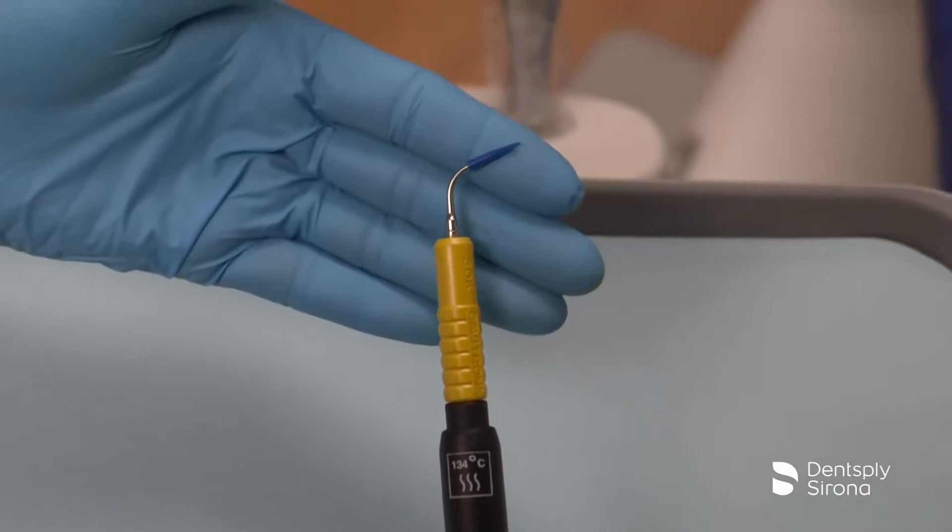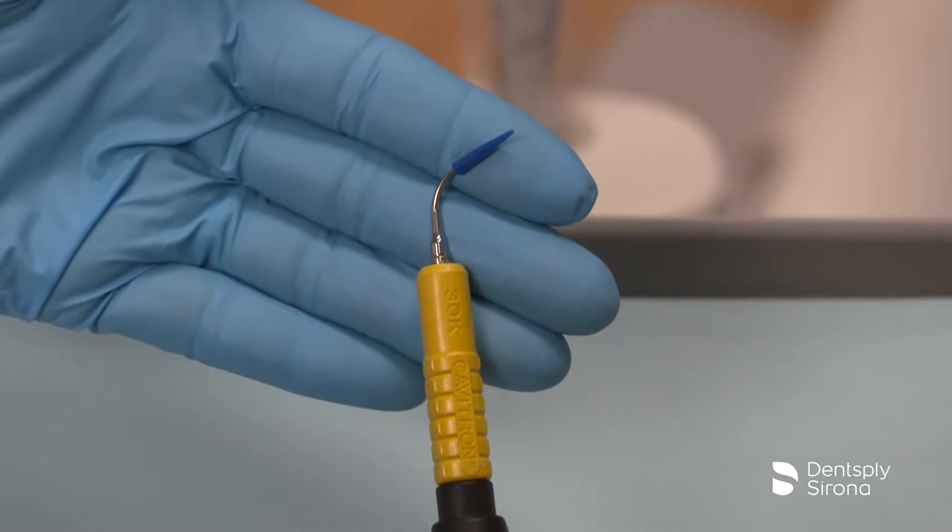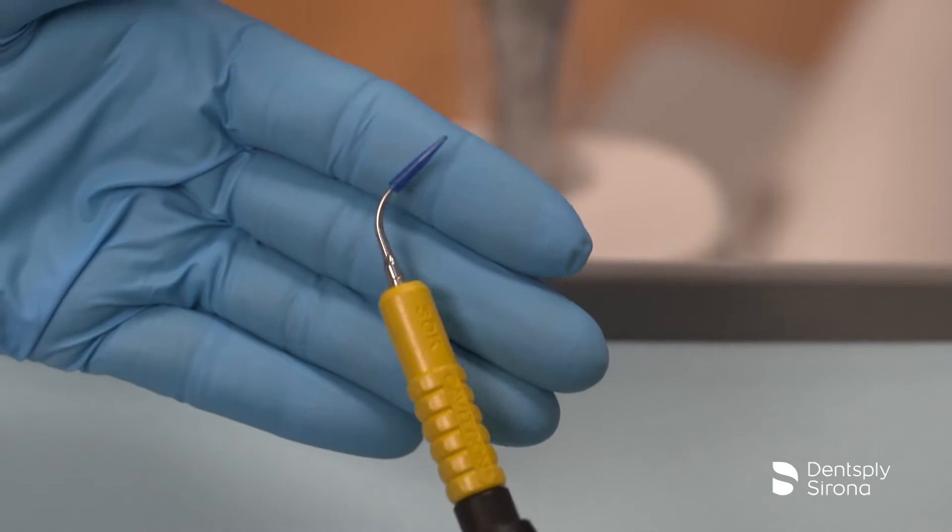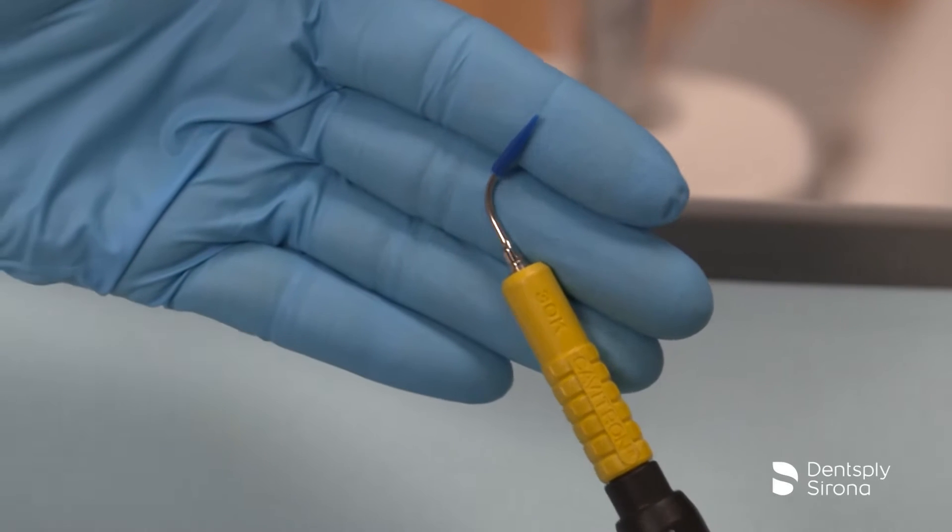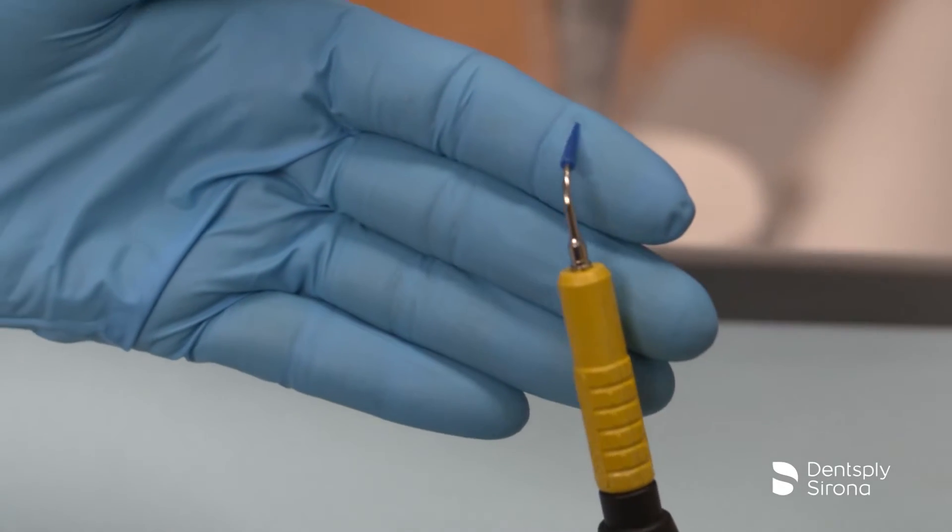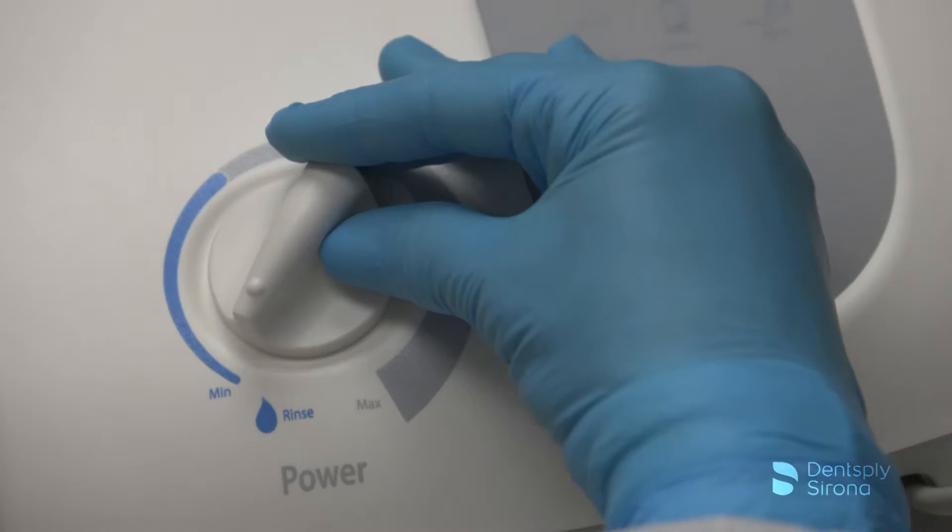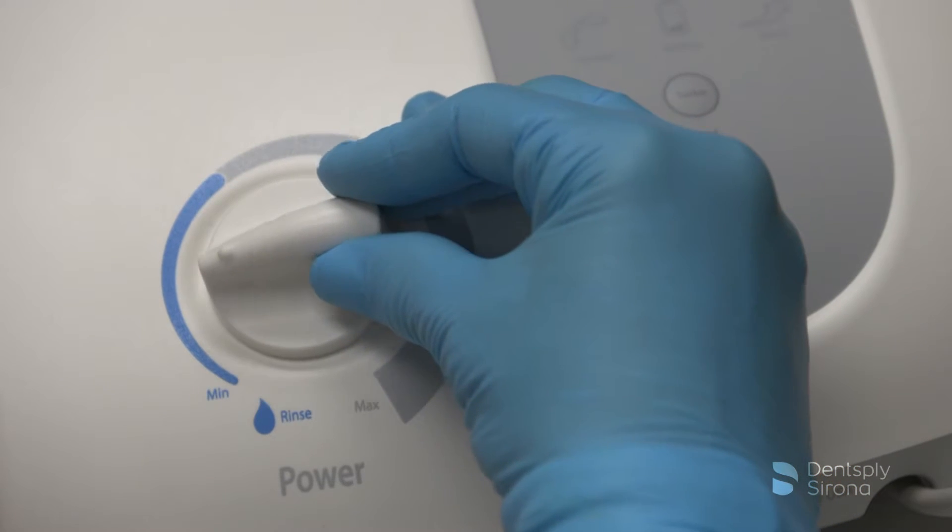This is the Cavitron Soft-Tip Ultrasonic Implant Scaler. This insert gently removes light to moderate plaque and calculus without damaging implant titanium abutment surfaces and should only be used at low power level.